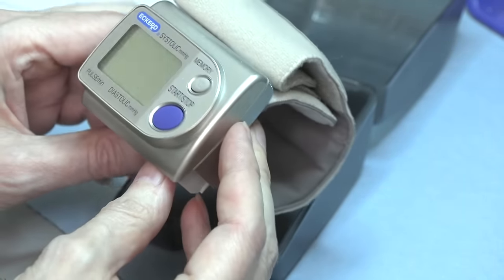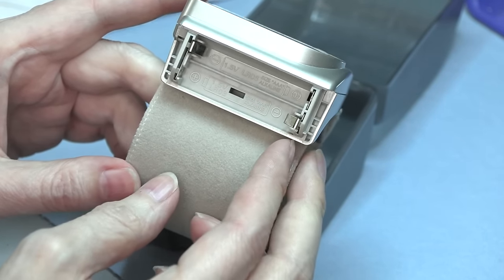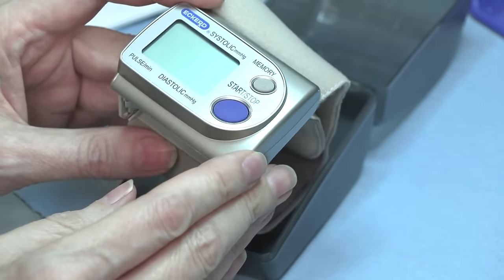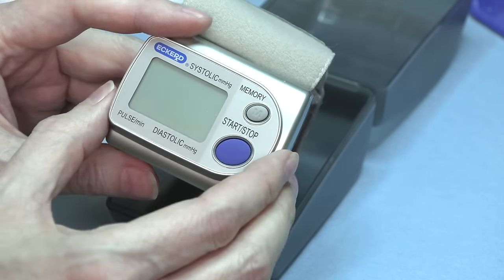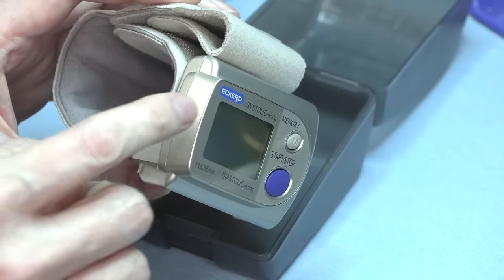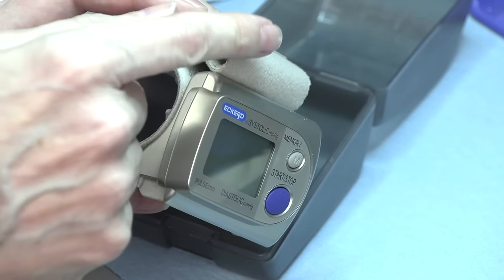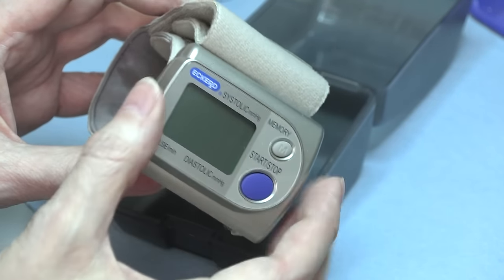These are ultra miniature, and I would expect probably a chip on board is what I'd expect to see, just a single chip on a single board. There'd have to be an air pump in there obviously, and there'd have to be valves to keep air pressure, and there'd have to be a pressure sensor. It might be all-in-one unit.